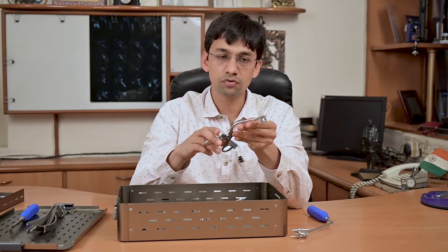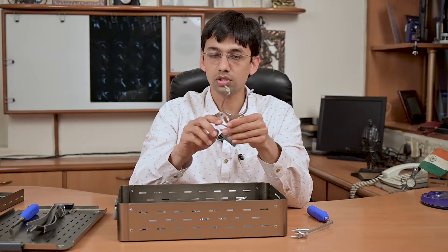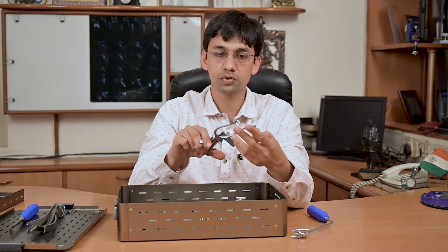Another master-type self-retracting retractor is provided with an auto-lock. It also has a blunt tip so it does not cause unnecessary soft tissue trauma.